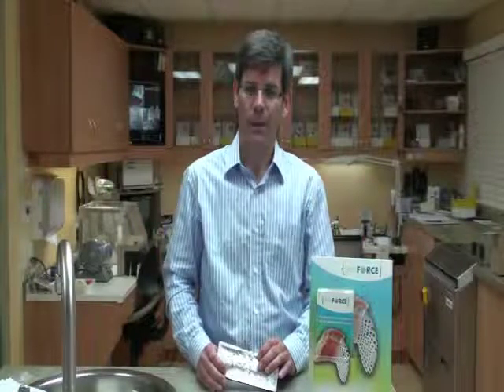Let's review the use of Fiber Force as a repair and reinforcement material for existing dentures. Fiber Force is an excellent alternative to metal wires such as half round and braided wires.